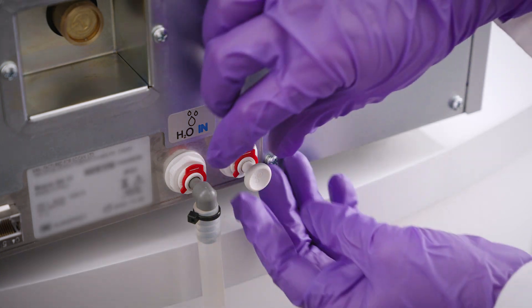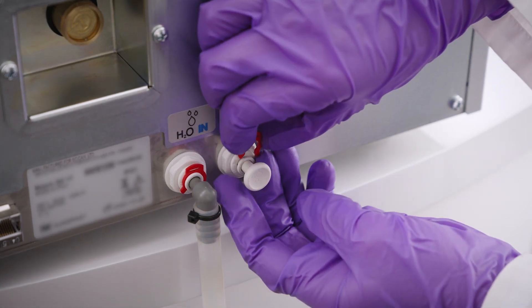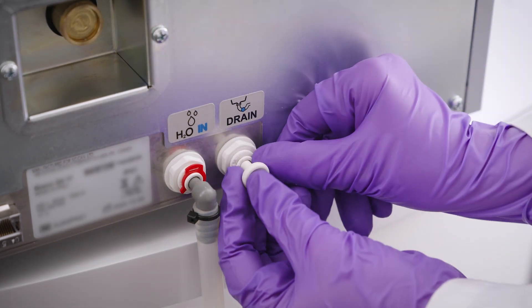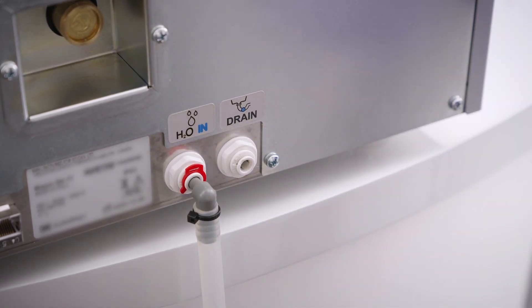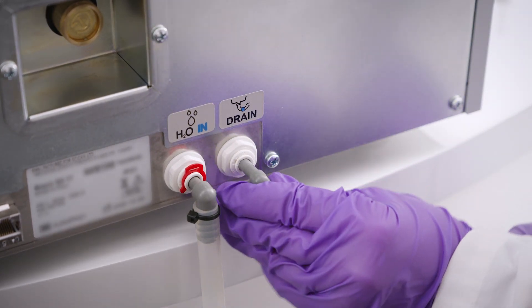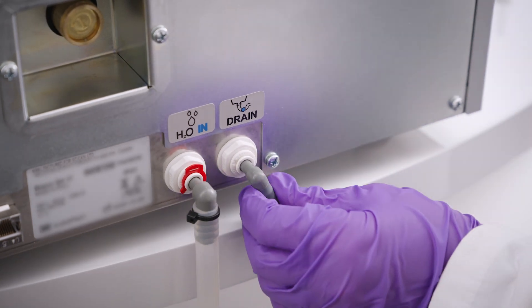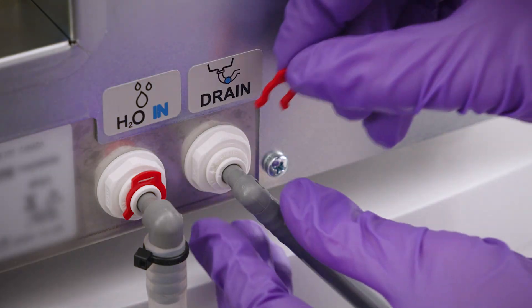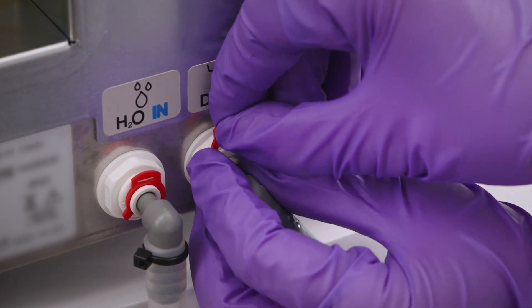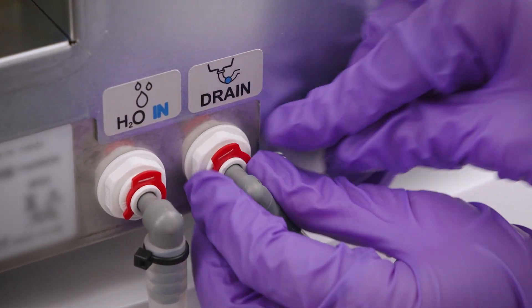Connect your system to automatic drainage by removing the cap and clip on the rear port of the autoclave. Connect the plastic tube onto the elbow union supplied with the unit, then refit the clip and fasten the supplied clamp to the drain siphon.